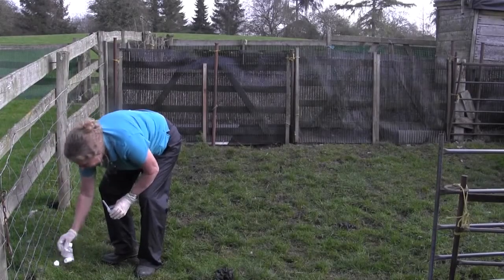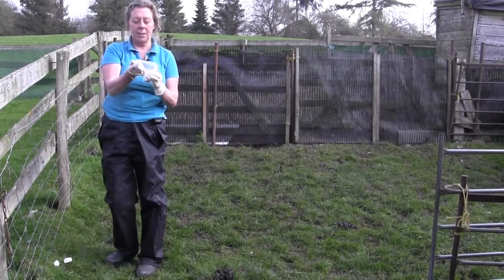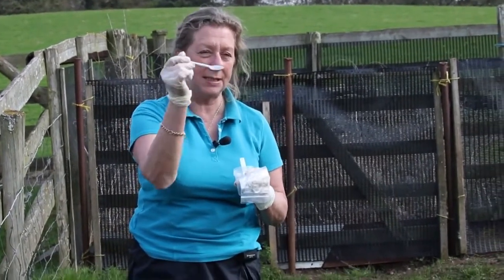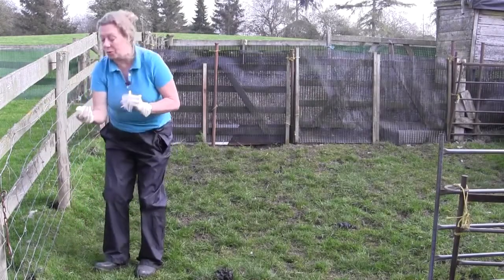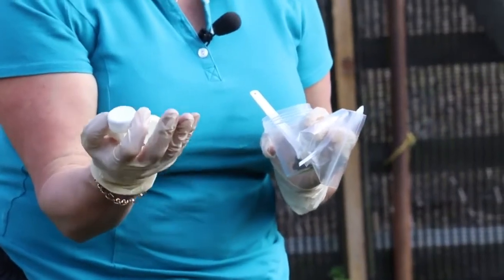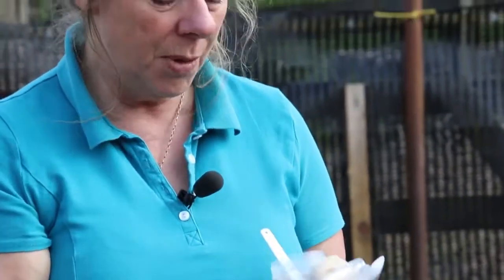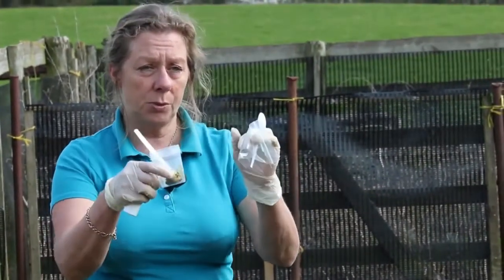Other options: that's a pot, but some labs will actually just give you a little bag, and this lab just provides an ordinary plastic spoon. The main thing is it's about the right size and encourages you to take the same sized sample. Sometimes some labs will send you a box with 10 or more individual pots, where you put an individual sample in each pot and the lab will combine them at the other end. But most of the time you're looking at either a pot or a small bag.